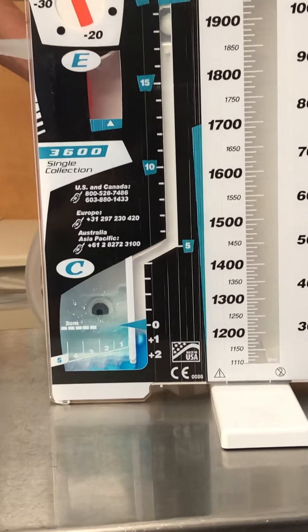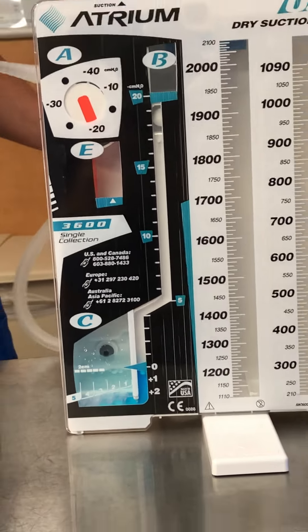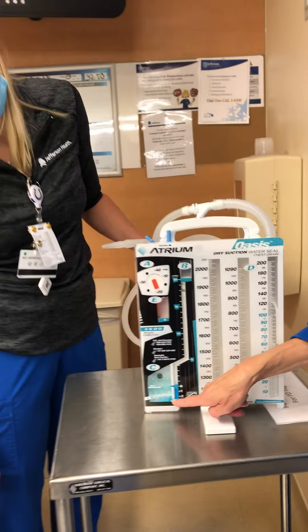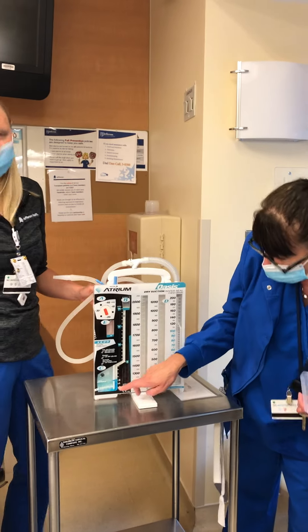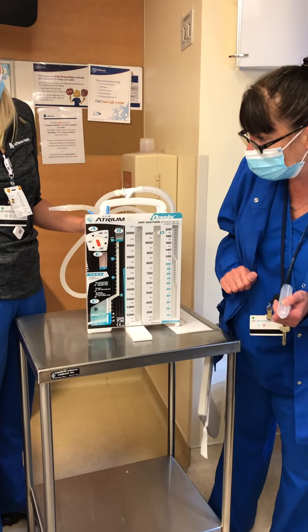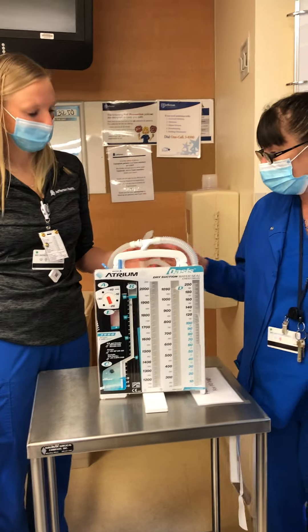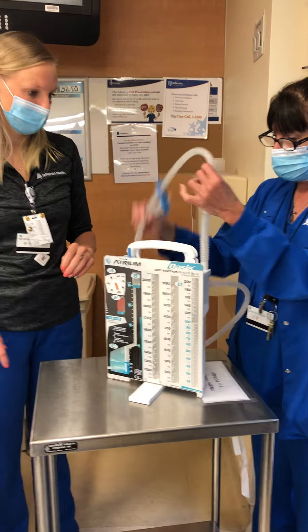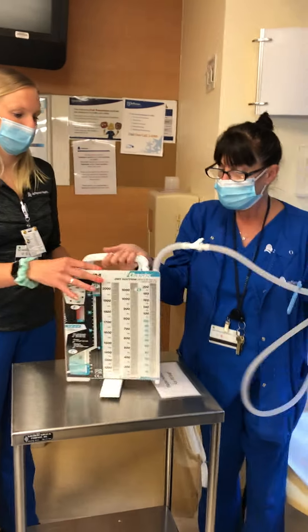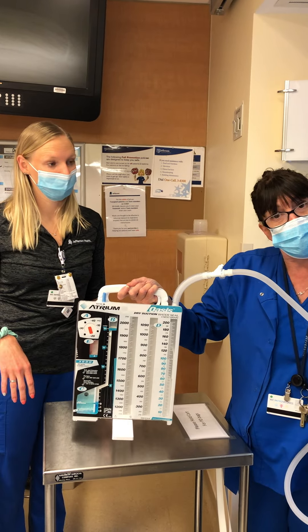If you notice that this illuminates blue, and it should — there is a little bit of dye in here. It just creates more ease in visualization of the chest tube and whether or not there's an air leak. You can discard the vial; it's no longer needed. And now your chest tube suction chamber is ready for use to be connected to your chest tube.